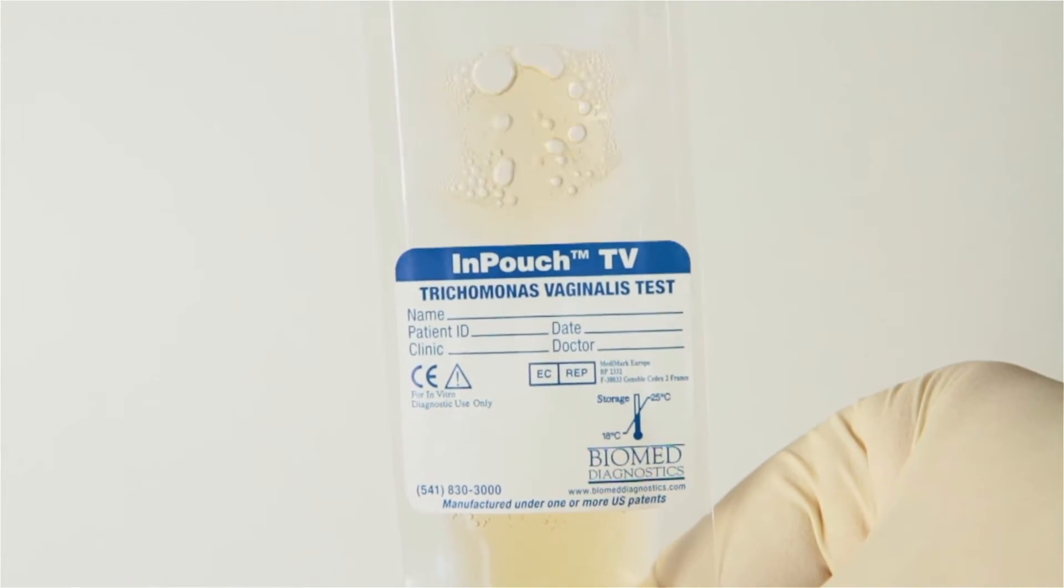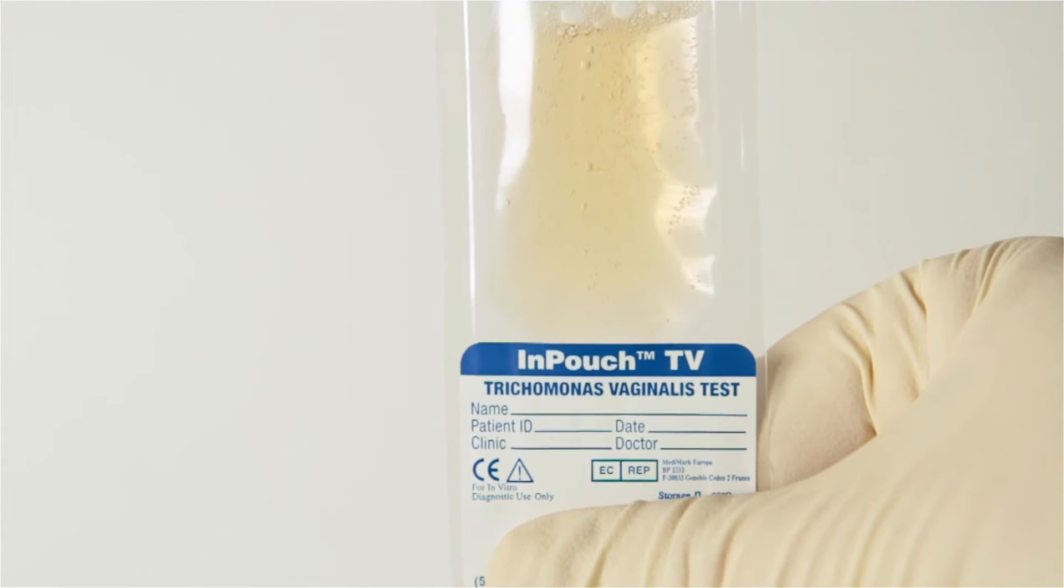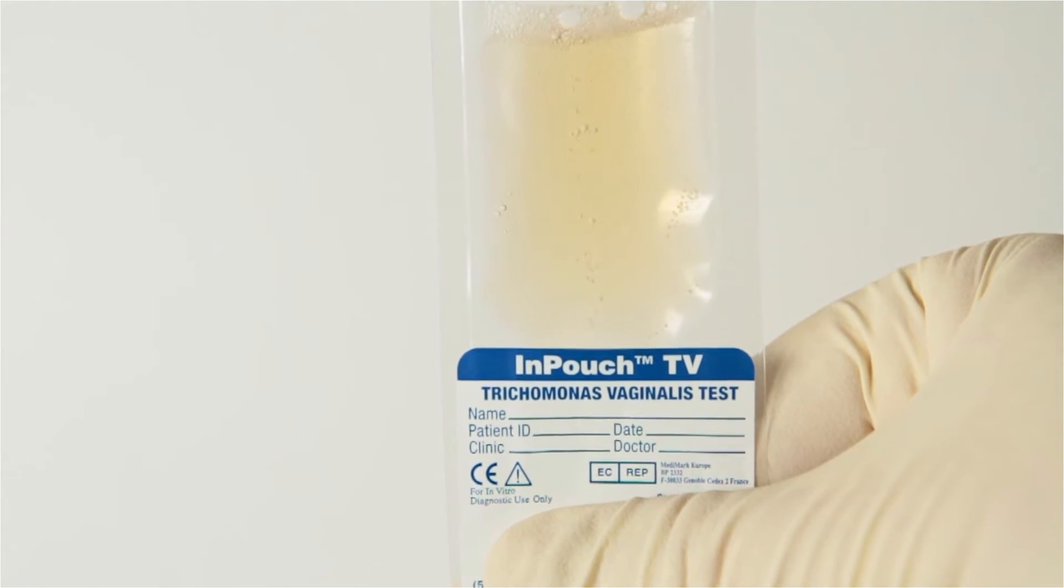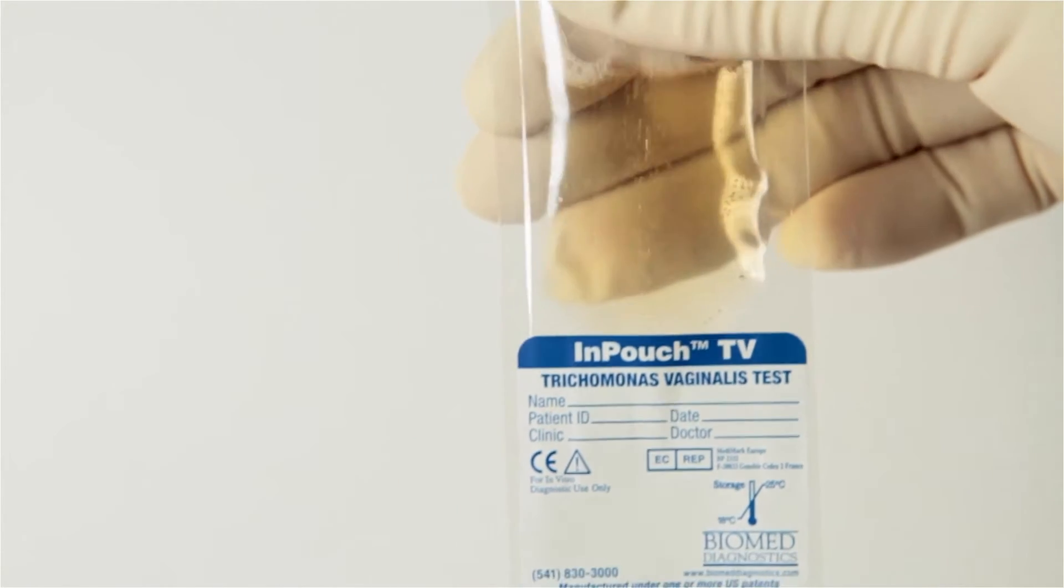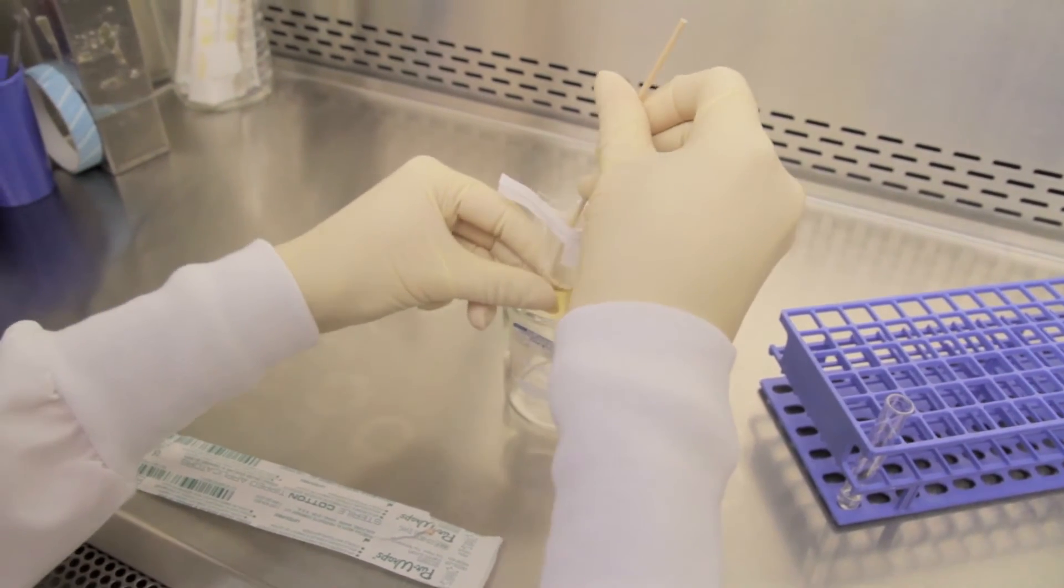The key to the effectiveness of the InPouch TV Diagnostic device is that it contains Biomed's exclusive gold standard media which is specifically designed to promote the growth of Trichomonas organisms while inhibiting the growth of other microorganisms which can interfere with a reliable diagnosis.